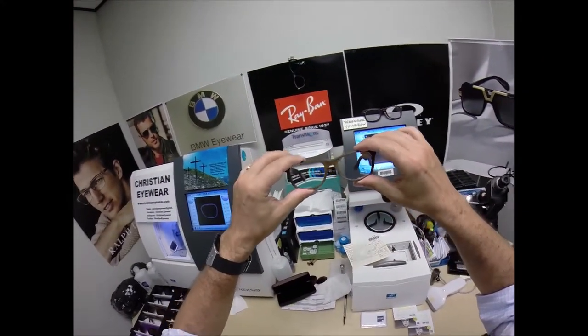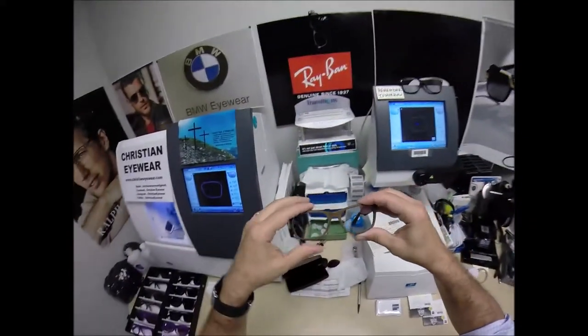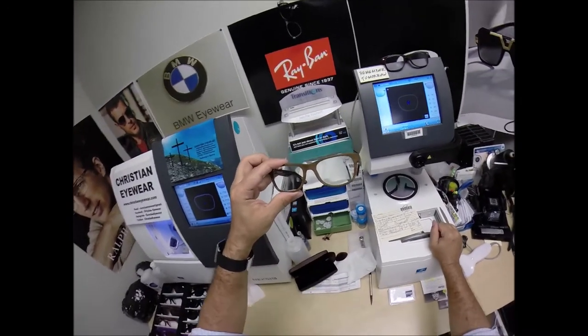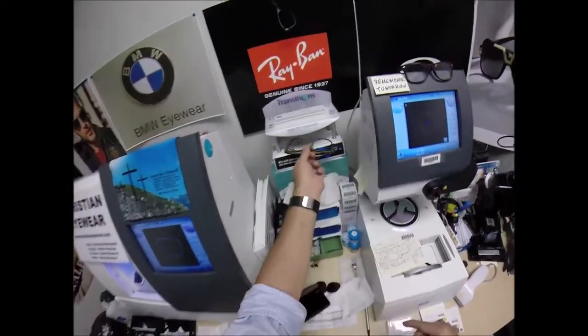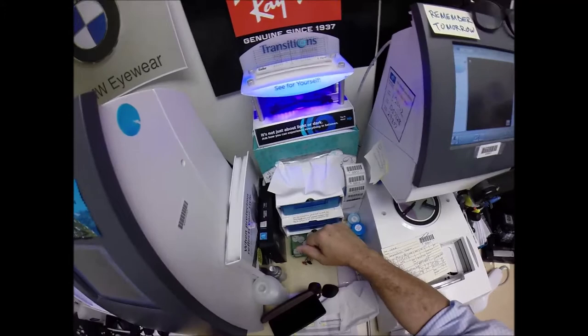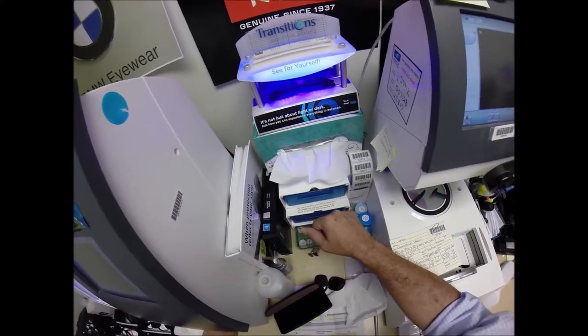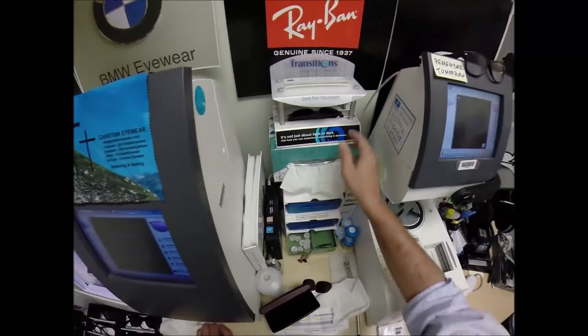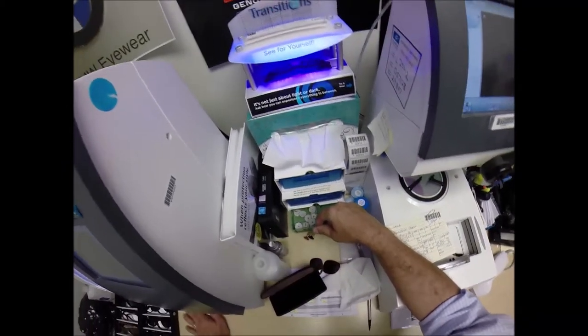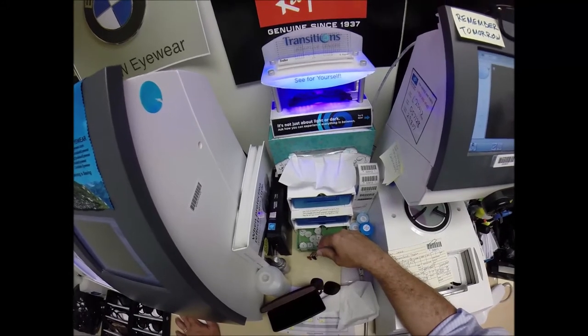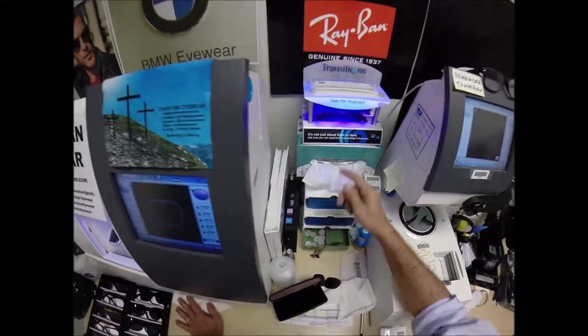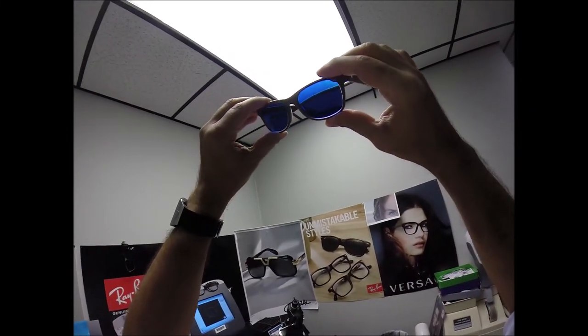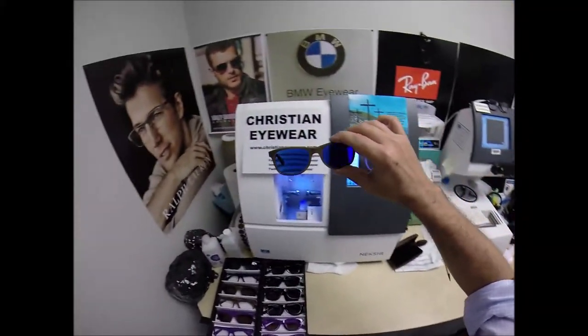So, this is what your lenses look like clear. I'm going to go ahead and expose them to a strong burst of ultraviolet light to cause the lenses to turn dark. Now, as you will see, it takes about 30 to 45 seconds for photochromic transition lenses to darken. It takes a little bit longer when you come back inside. 45 seconds to a minute. Minute 15. Now, this is important. Everyone pay attention. All photochromic transition lenses will get dark on day one and continue to darken every day for the first couple weeks. The only time they won't work is if you're behind the windshield of a car. Your windshield absorbs the sun's harmful ultraviolet rays that would cause your dashboard to crack from sitting in the sun all day, and that's why they don't turn dark in a car. Now, there is a Photofusion Extra Gray that will get 30 to 50% dark behind a windshield. Now, they're also temperature sensitive, which is important since this is early August at the time of this video. They will get darker when it's 85 and below than they will when it's 95 and above. But I remind everyone when it's 100 degrees outside, if you're miserable, they're miserable. Nobody works 100% when it's 100 degrees outside. We all work much better when it cools off.